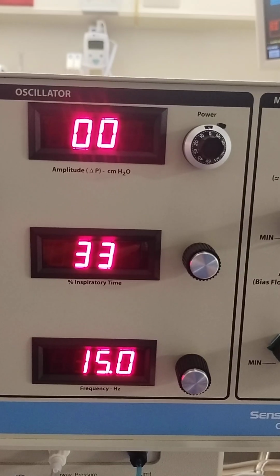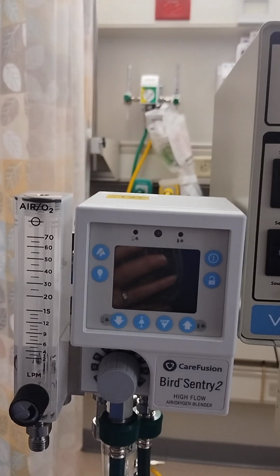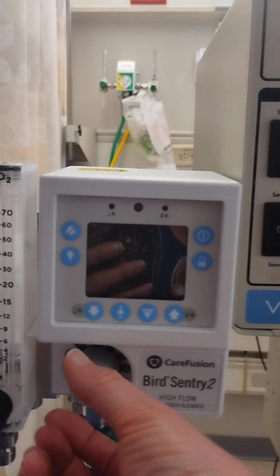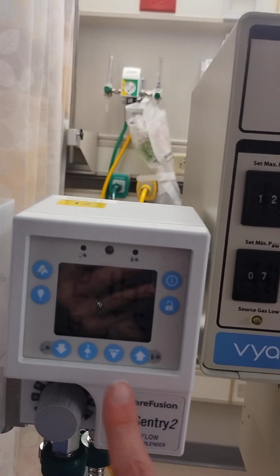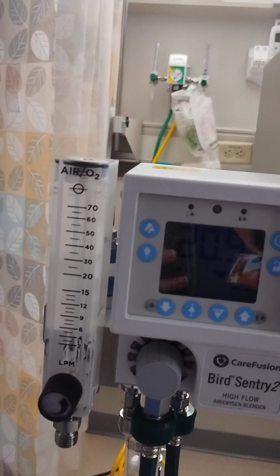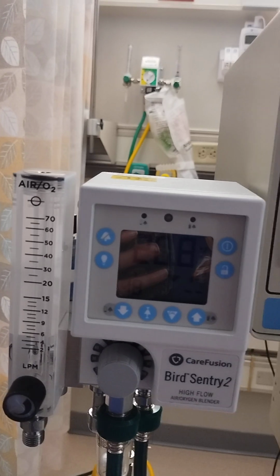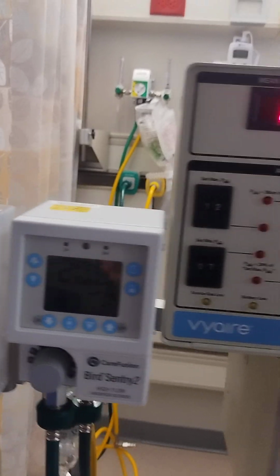And then the next step would be to adjust your FiO2. So depending on what your baby is currently needing with either positive pressure ventilations or on the conventional ventilator, you can adjust that here. This particular blender turns on right here, and so this is where we're going to see our analyzed FiO2. This is a place to plug in your bag if you need to do that. We actually use the T-piece resuscitator here at my facility, but this could be a place to plug in your backup flow inflating bag if you wanted to do that.